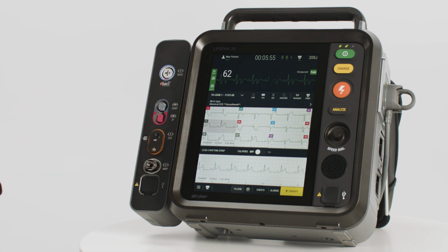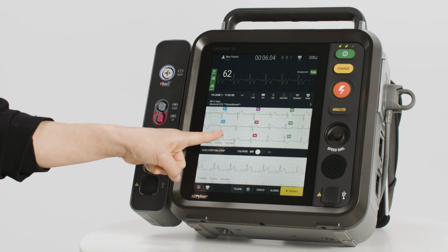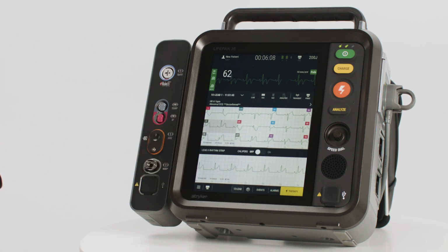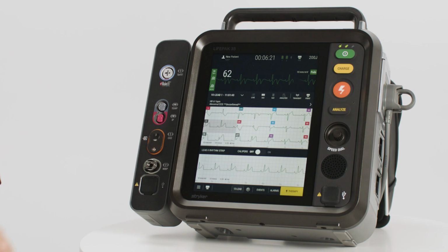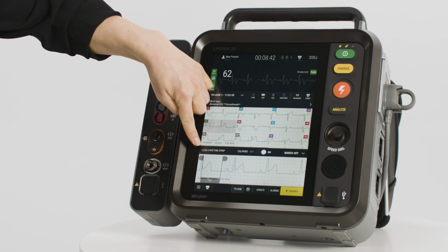When viewed in 3x4 or 3x5 format, the 12-15 lead report generates a selectable 10-second rhythm strip. The 10-second rhythm strip offers on-screen ECG calipers which can be used to compare ECG intervals and waveform durations. To activate the calipers, press Calipers On. Press Hold and slide the caliper lines to attain desired interval duration.